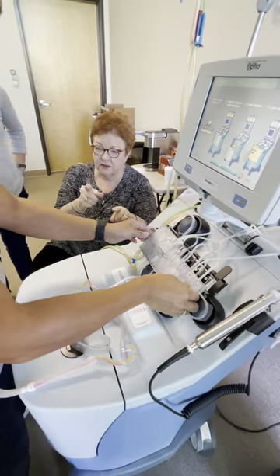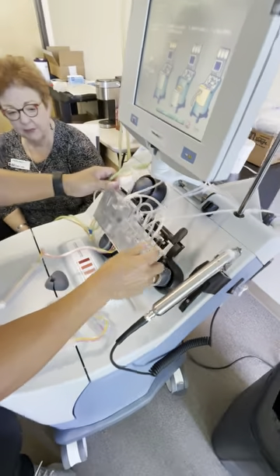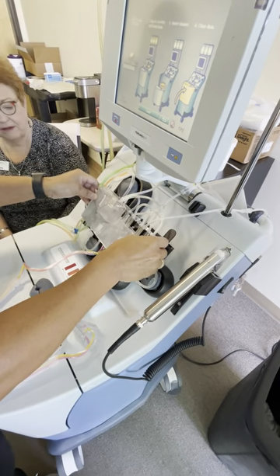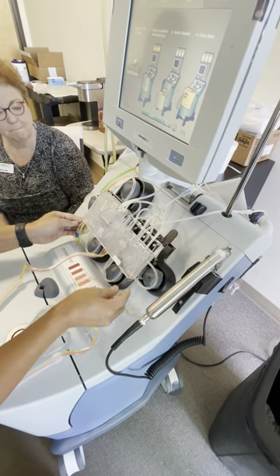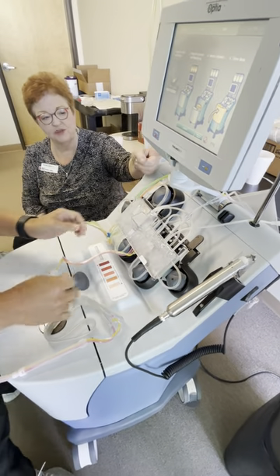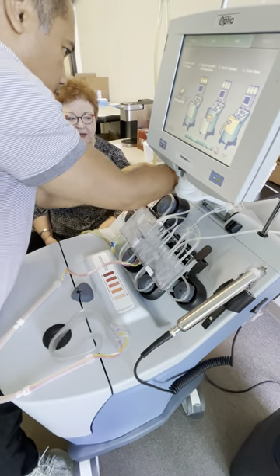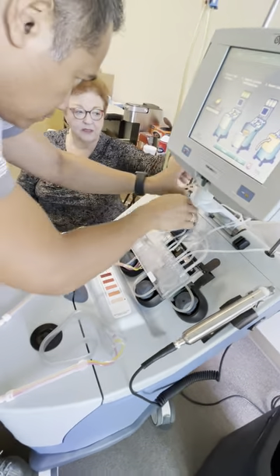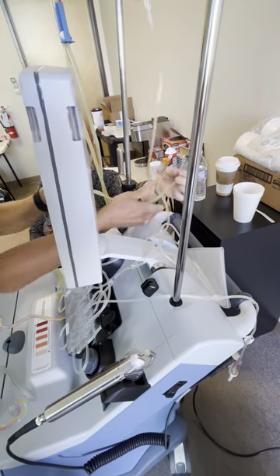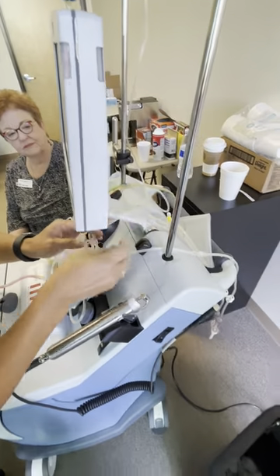Now pretend it misloaded. Show me how to unload it. Now load it up again. Take it all the way out. Now get all the tubes pulled straight back, because when that tray lowers, you don't want them to get caught. Untangle all of them — you're tangled here, get that all untangled. I am an obsessive compulsive nurse. Nothing must be tangled, and that's a good practice.